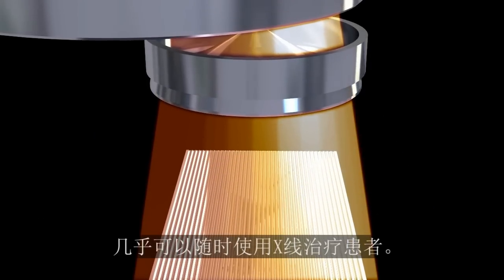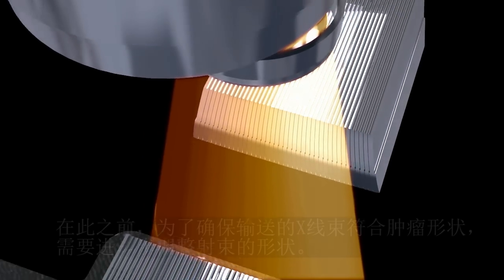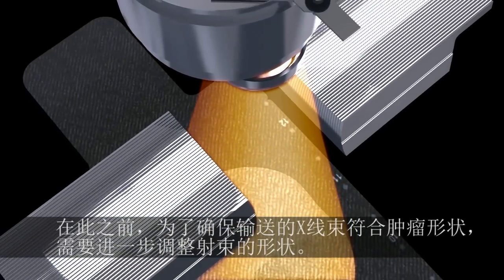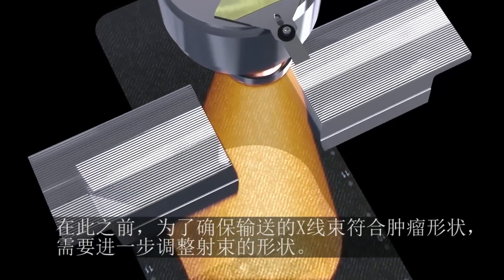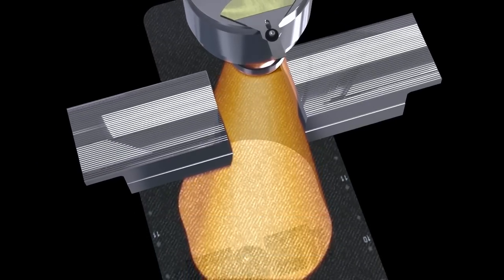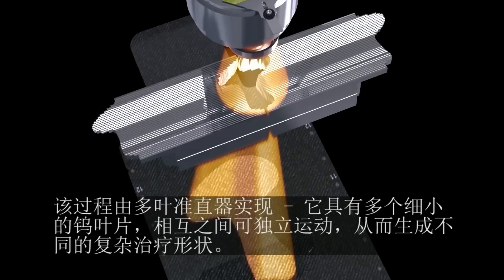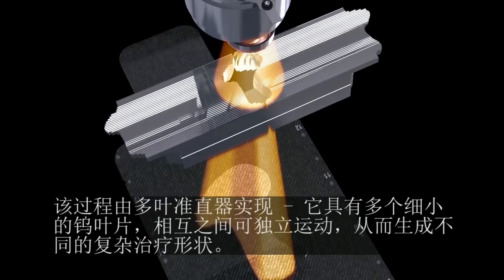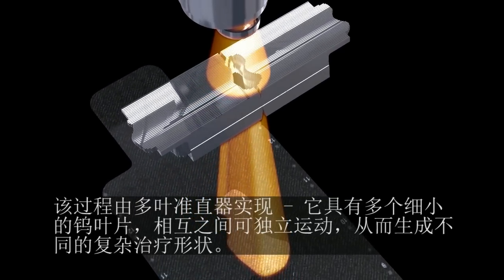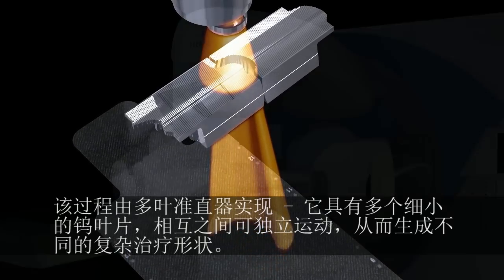The X-ray beam is almost ready to treat the patient. Before that, further beam shaping is required to ensure that the shape of the delivered X-ray beam matches the shape of the tumor. This is done using a multi-leaf collimator — a number of fine tungsten leaves which move independently of one another and can create a variety of complex treatment shapes.